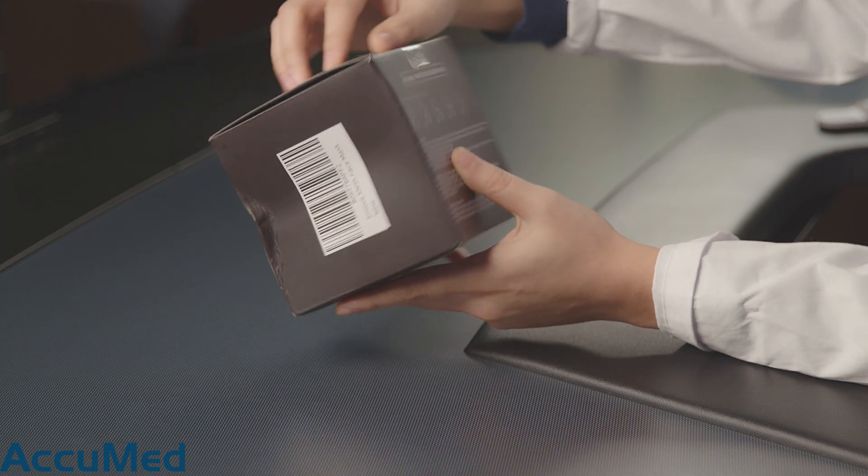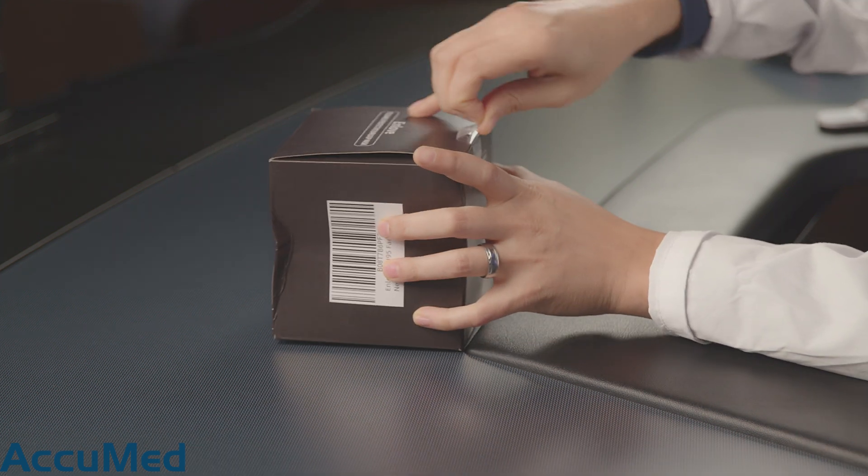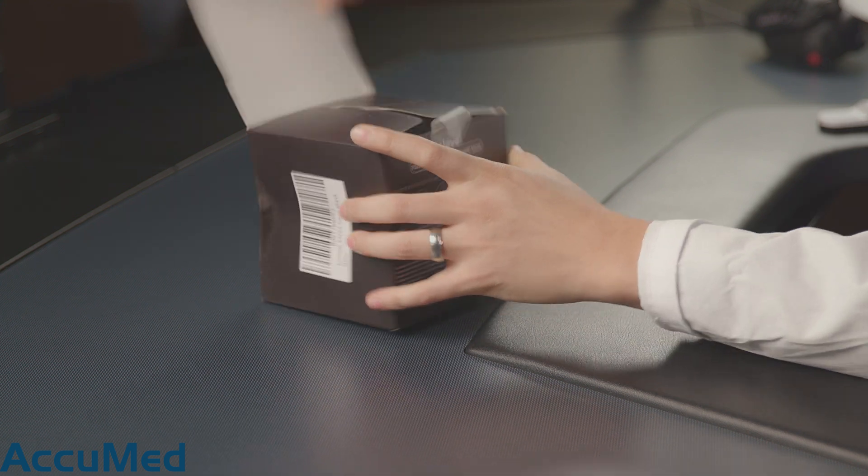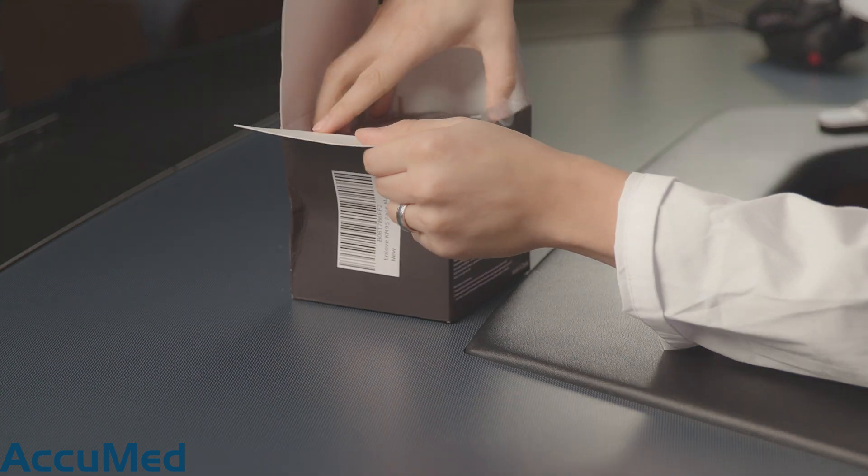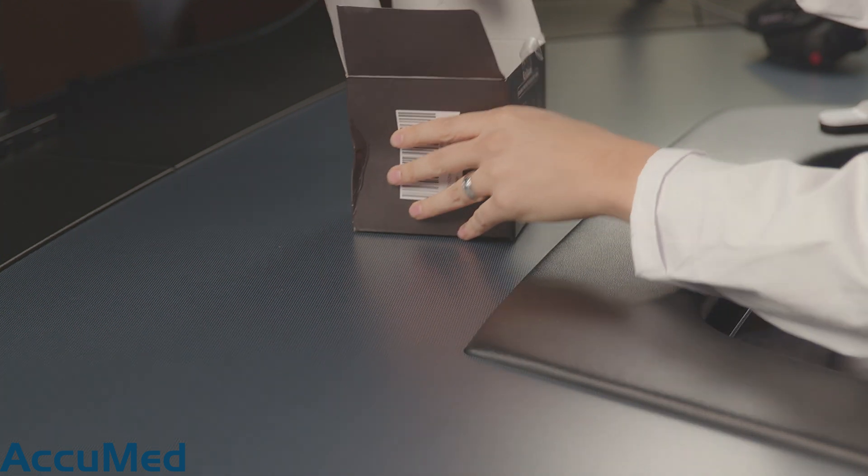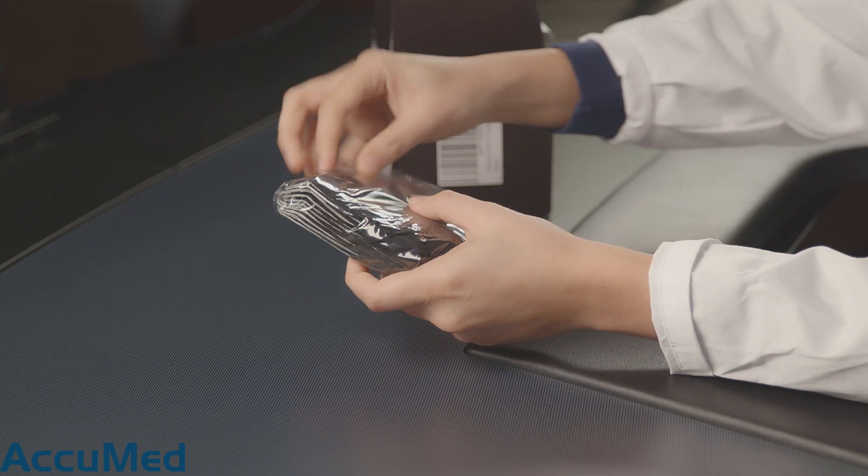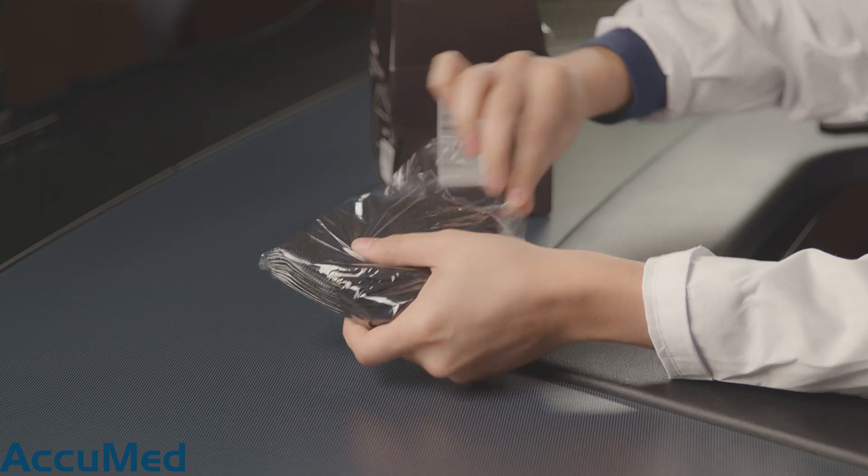This is the packaging. It comes in a solid black box. I'm going to pop this open. Let's take a look at how they're packaged. So it looks like they packaged them in a lump of 10. Let me go ahead and take one of these out.